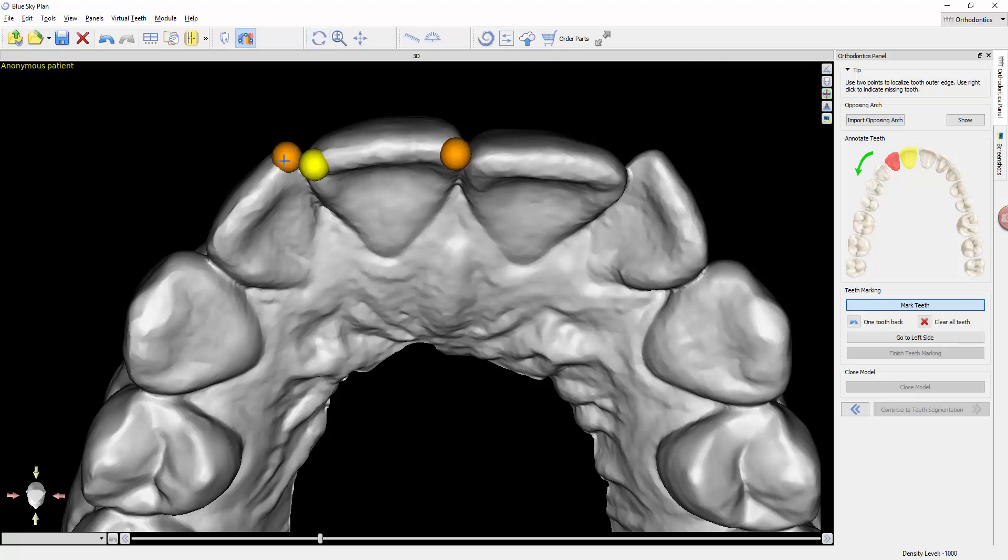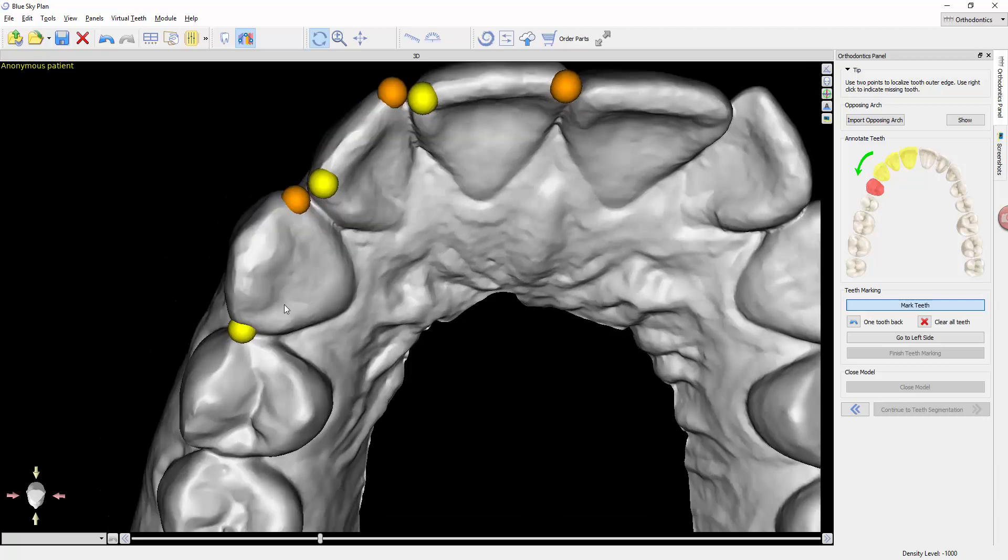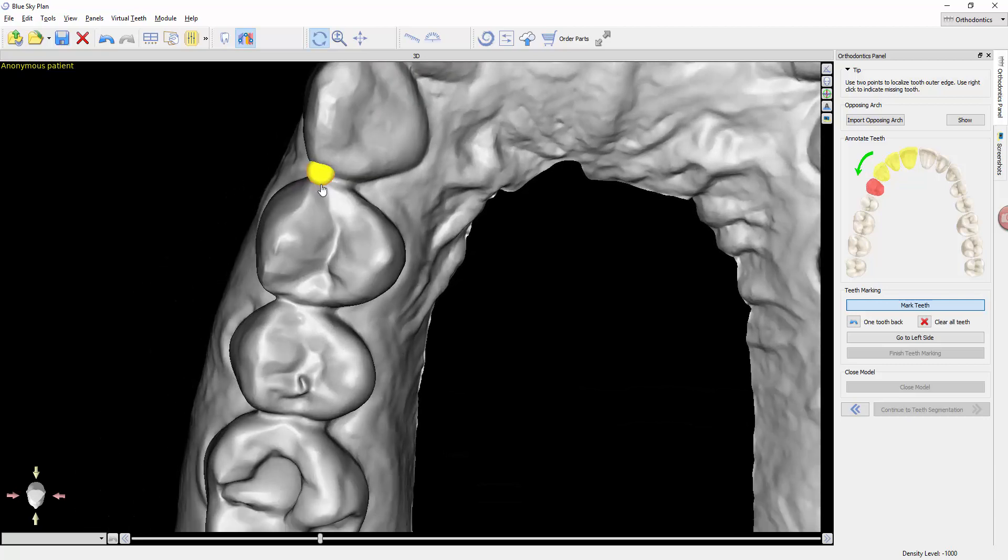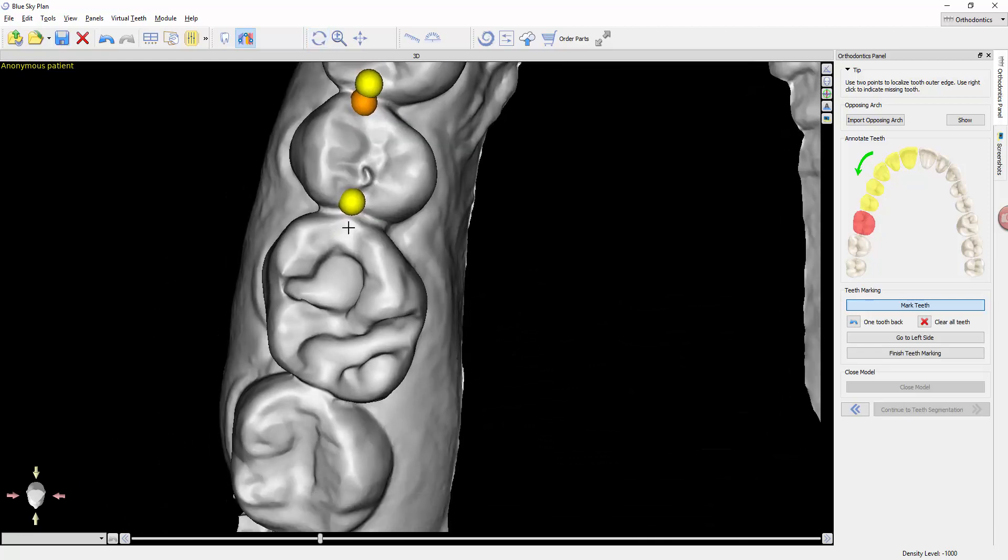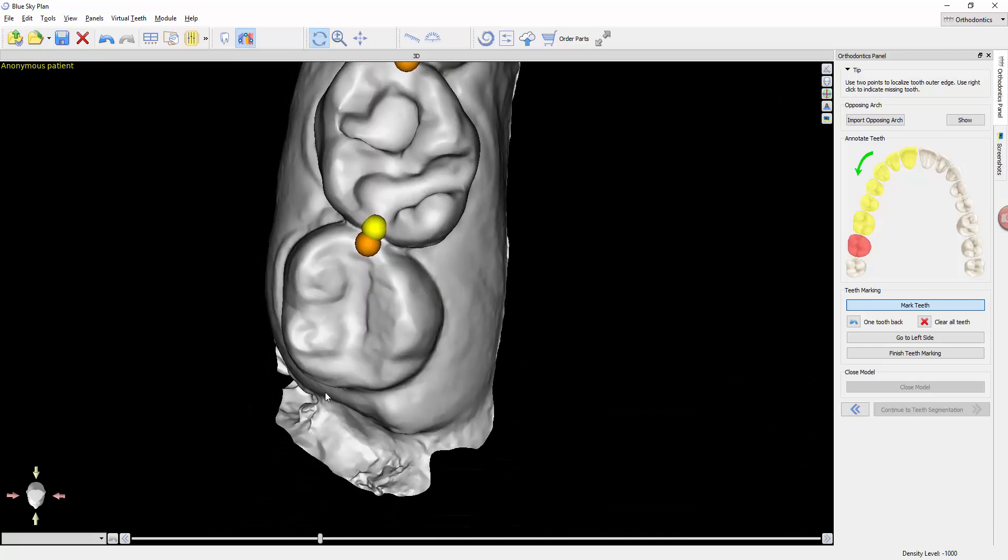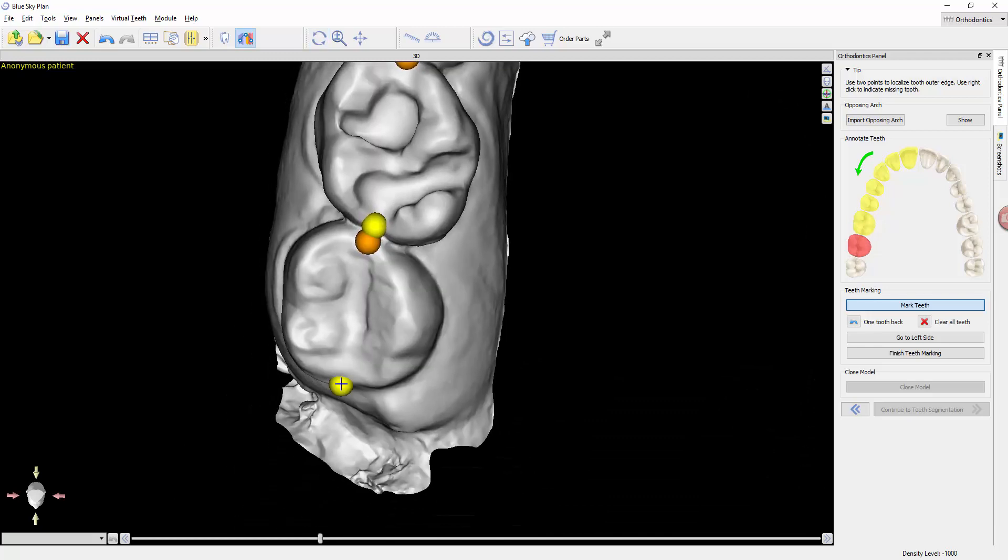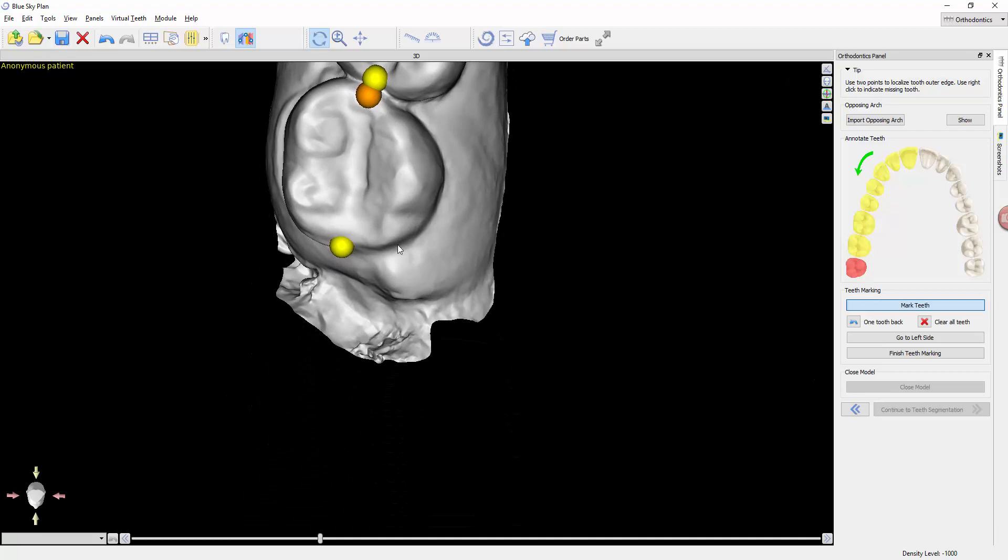Not only is it doing that, and I'm going to progress all the way through and mark every tooth. It doesn't matter if you slightly fall off a tooth, you're really just telling it some orientation. As I progress through here, I do want to note something.